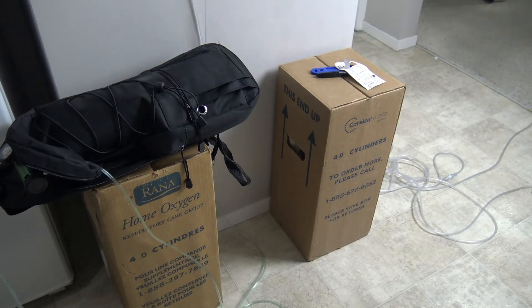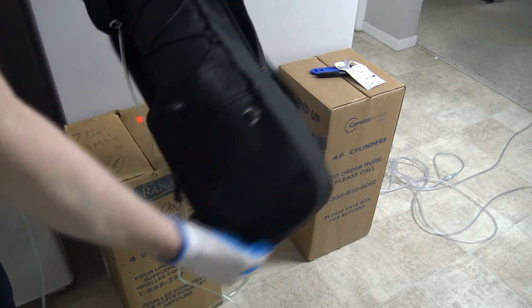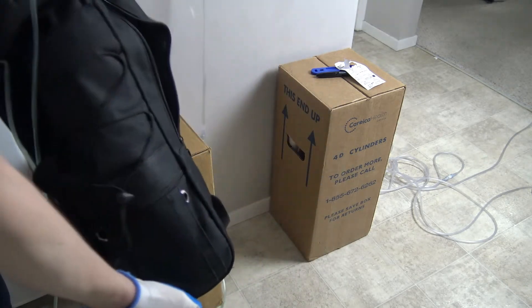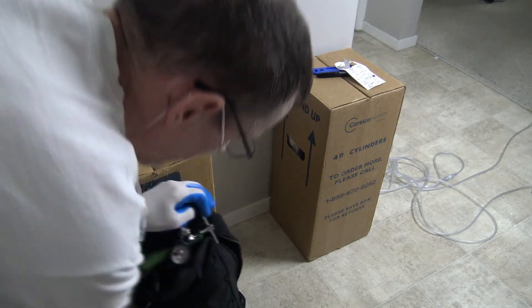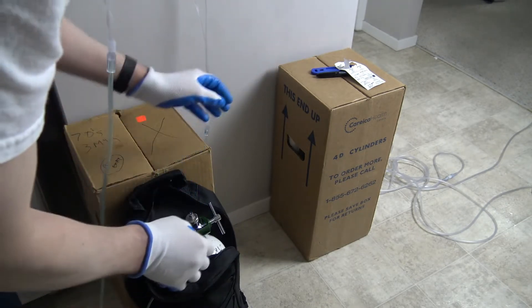And this is my portable oxygen here. This is what I carry in — I carry it in a backpack. This is my backpack here. I'll just take the bottle — I'll show you. They're actually called cylinders, not bottles. Let's pull this off here.